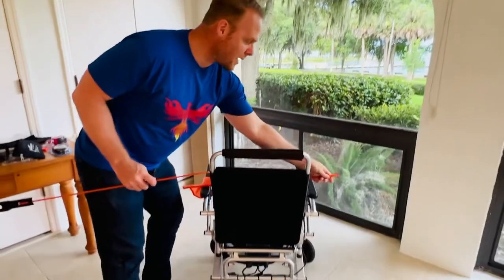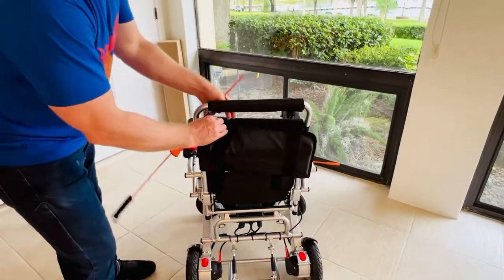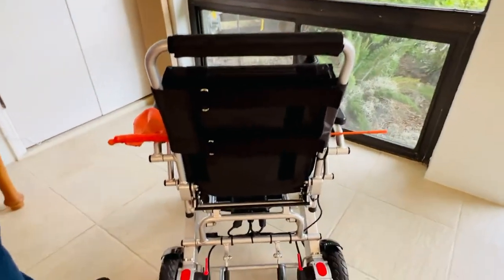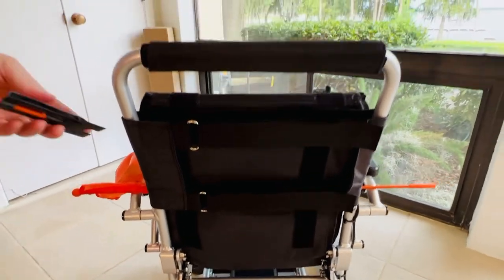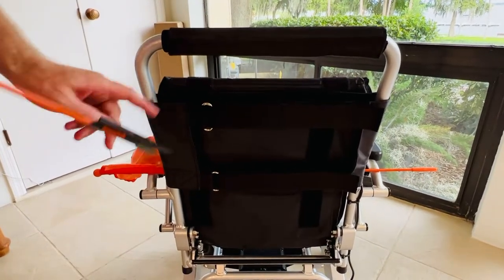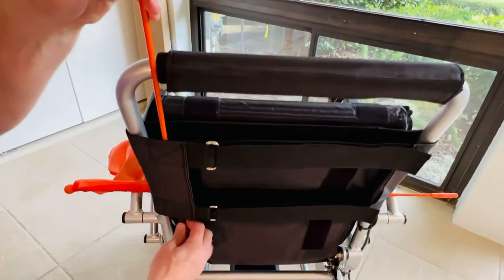I'm going to detach the flag and just remove half of the seat cushion. You can see that we have the adjustable part of the backrest and there are two parts. I like to use the part that is kind of the away end of the velcro.